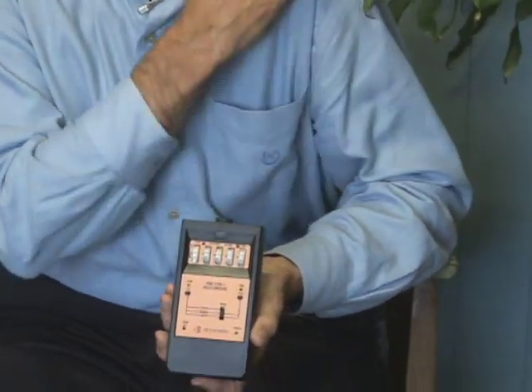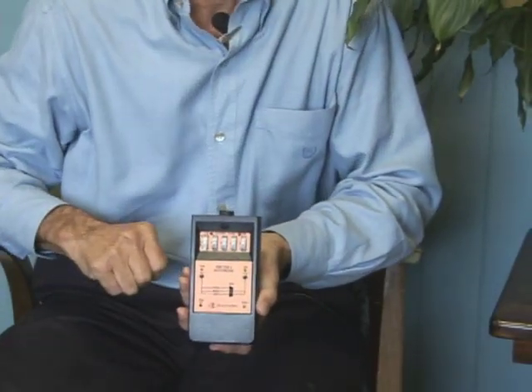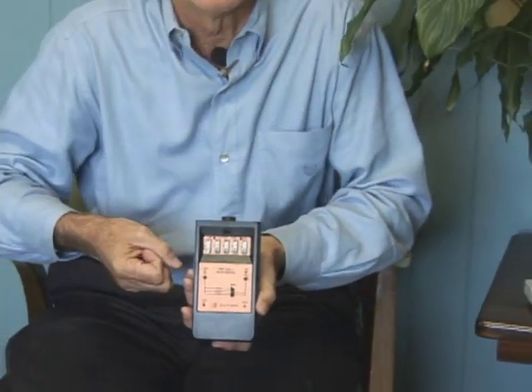This particular unit has biofeedback — it can sense electrical changes. I can literally walk up to you and say, 'pretend I'm going to throw you a baseball,' and just when I tell you to pretend, immediately there is a change in the electrical discharge pattern coming down your brain, and it goes over to your arm to say 'get ready to catch a baseball.' That little change, this machine would pick up, and then it would stimulate — the motor nerves, the muscle nerves — to do the necessary things to catch a baseball. Really unique.